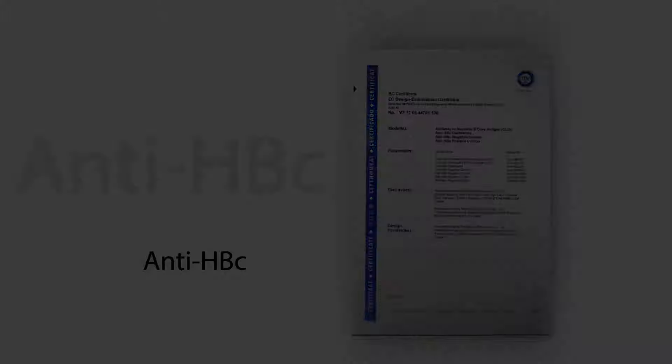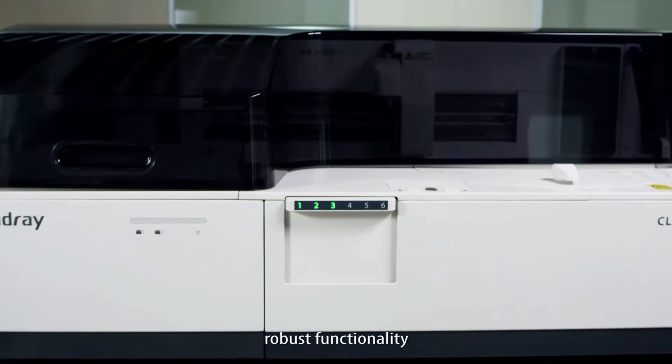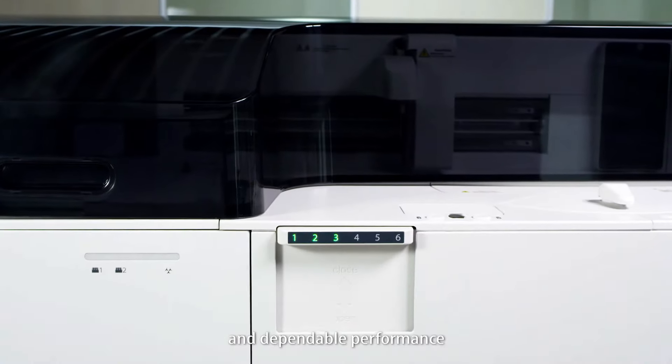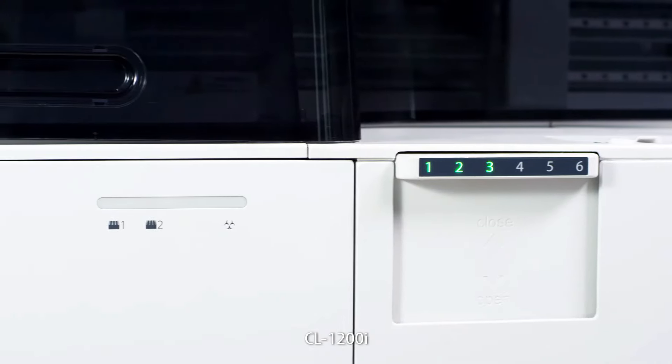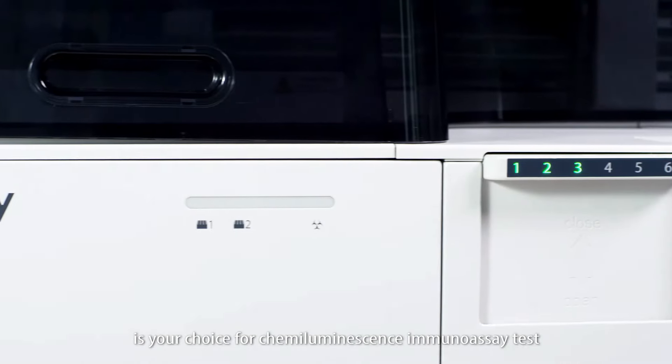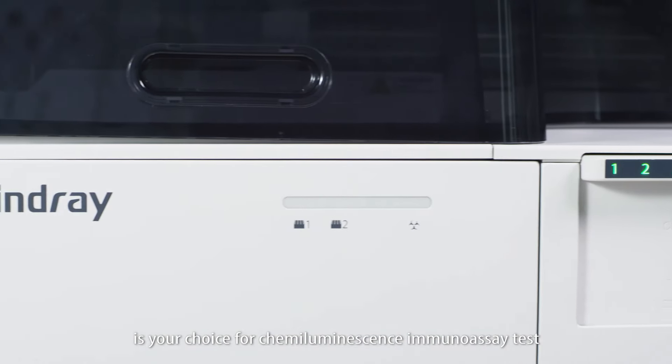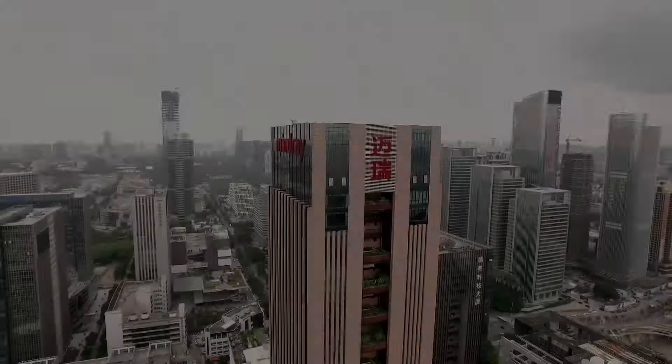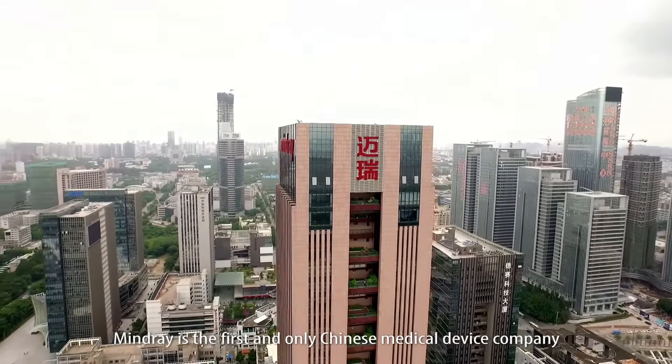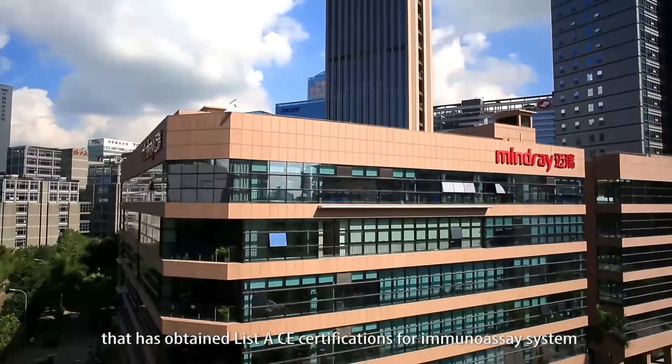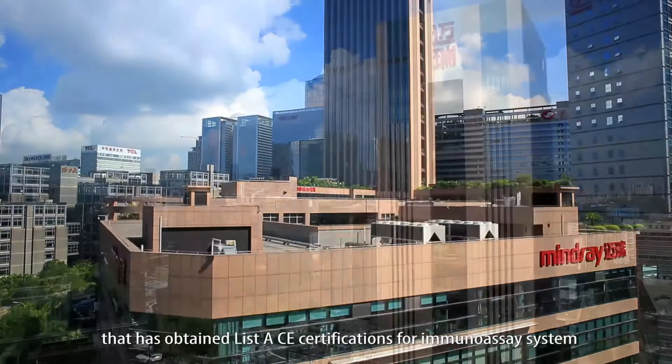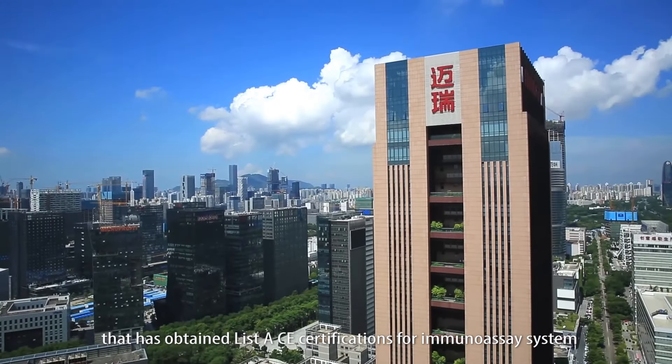With easy operation, robust functionality, and dependable performance, CL-1200i is your choice for chemiluminescence immunoassay testing. Mindray is the first and only Chinese medical device company for chemiluminescence immunoassay that has obtained List A CE certifications for immune assay systems.